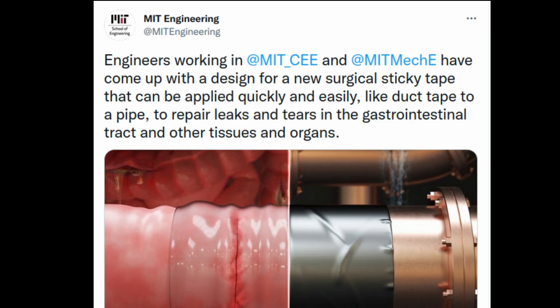MIT engineers have now developed a kind of surgical duct tape — a strong, flexible and biocompatible sticky patch that can be easily and quickly applied to biological tissues and organs to help seal tears and wounds.